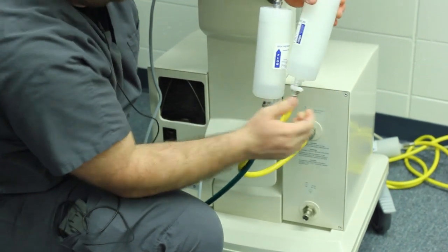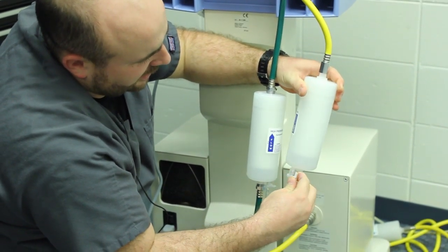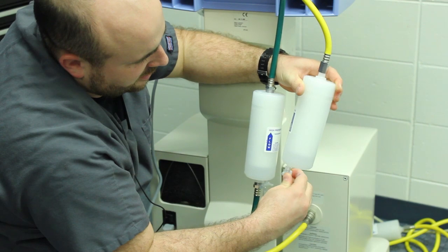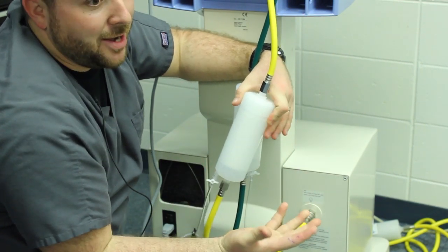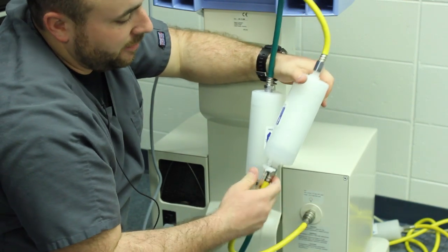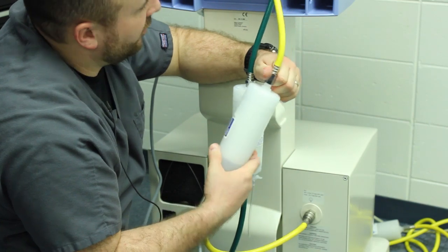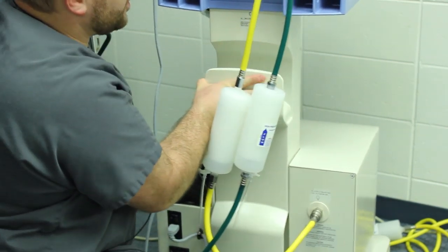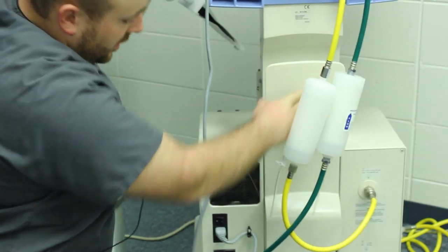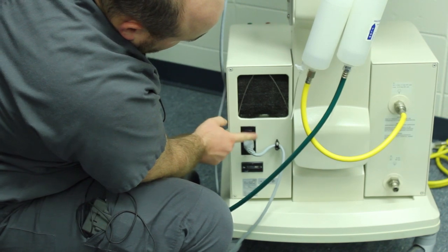You can also get some leaks in these fittings. If your vent is alarming low volume or air supply down and everything is running and you're wondering what the problem is, you could have a leak around one of these connections. That doesn't happen very often in the lab. The compressor, which is one of the first things I would turn on, is right here — it's plugged in and you turn it on right here.